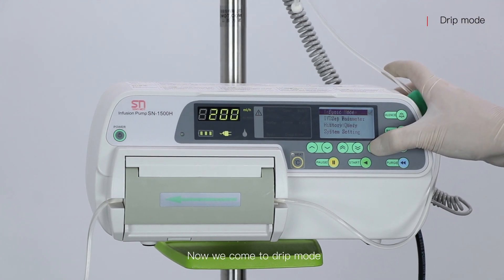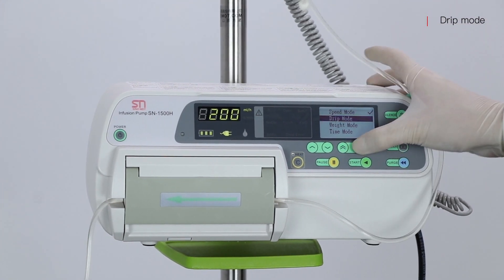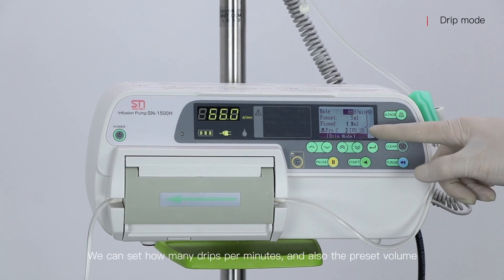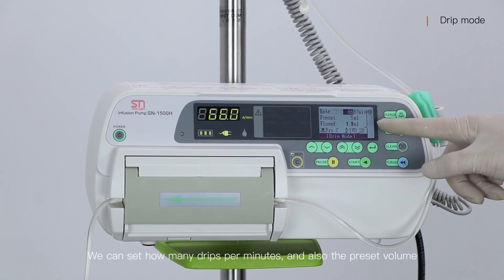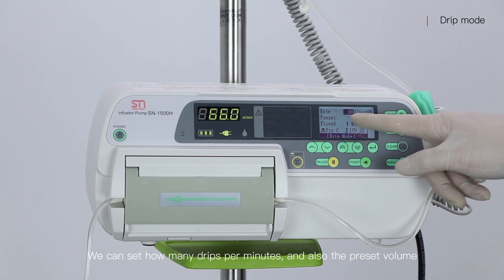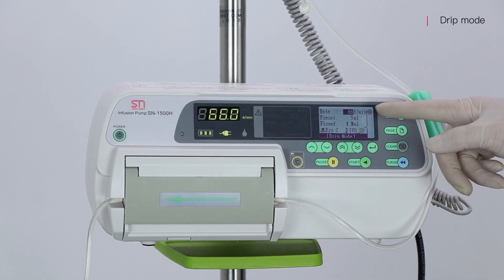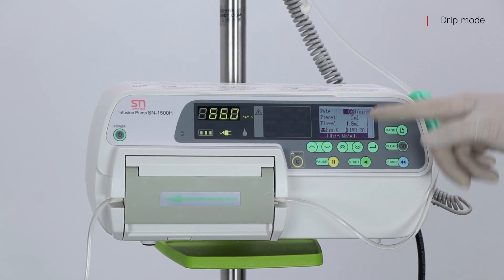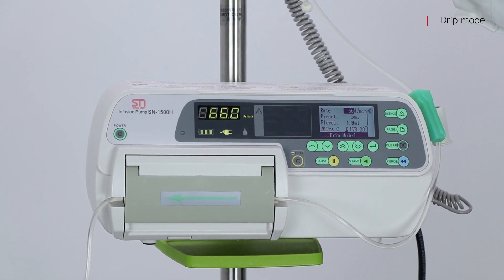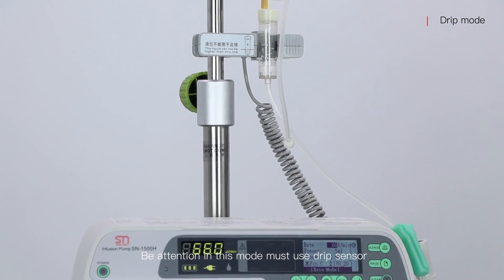Now we come to Drip Mode. We can set how many drips per minute and also the preset volume. Note: in this mode, the drip sensor must be used.